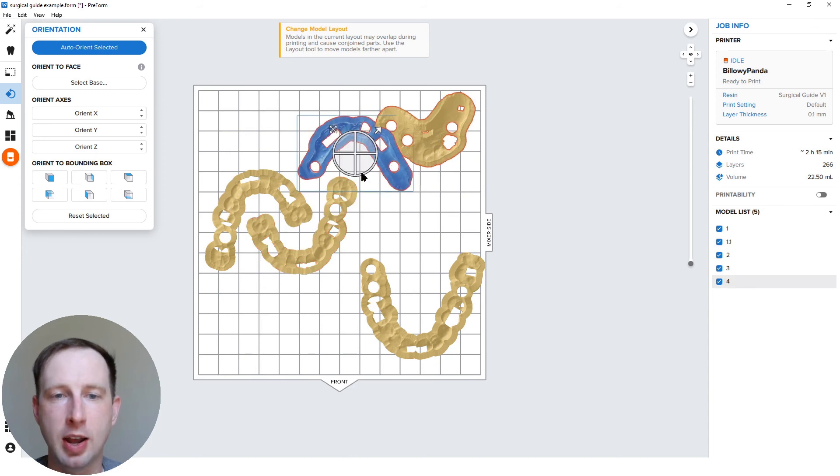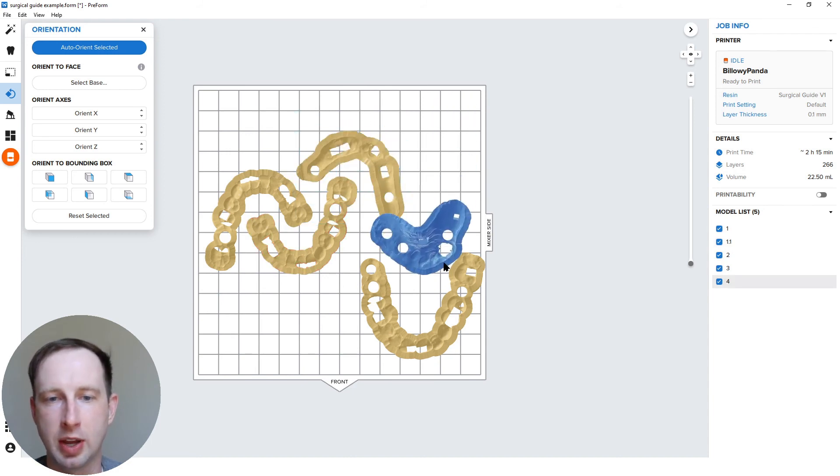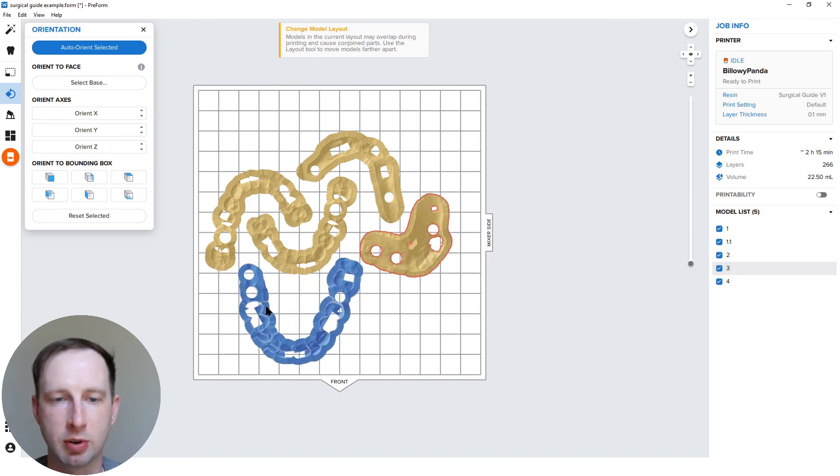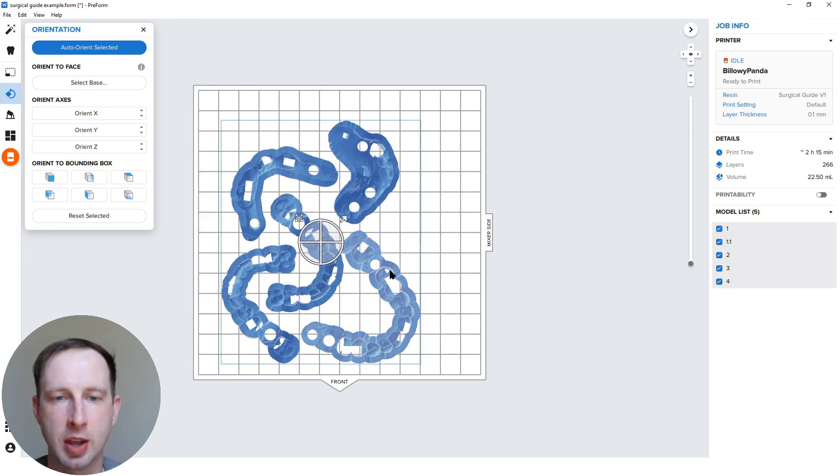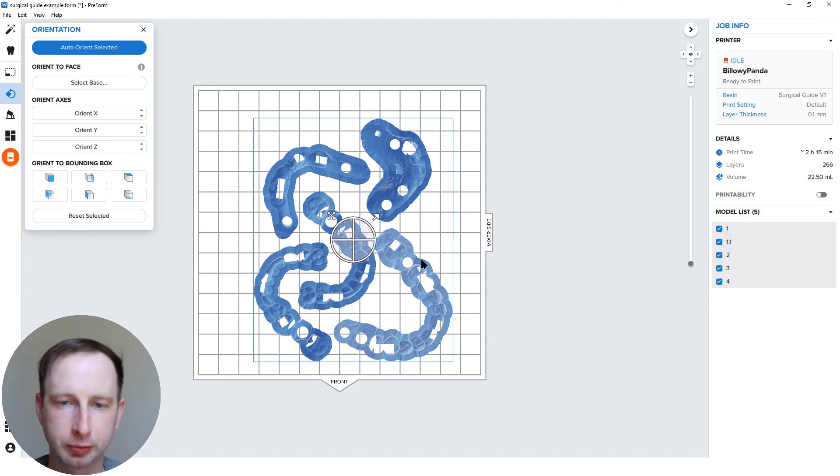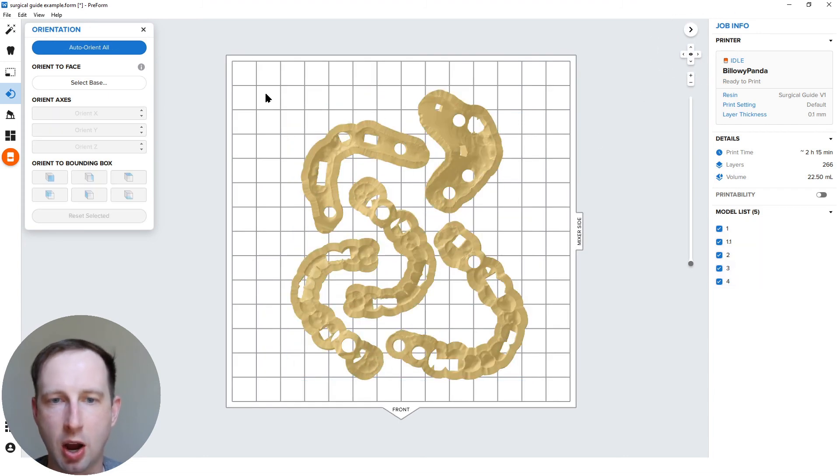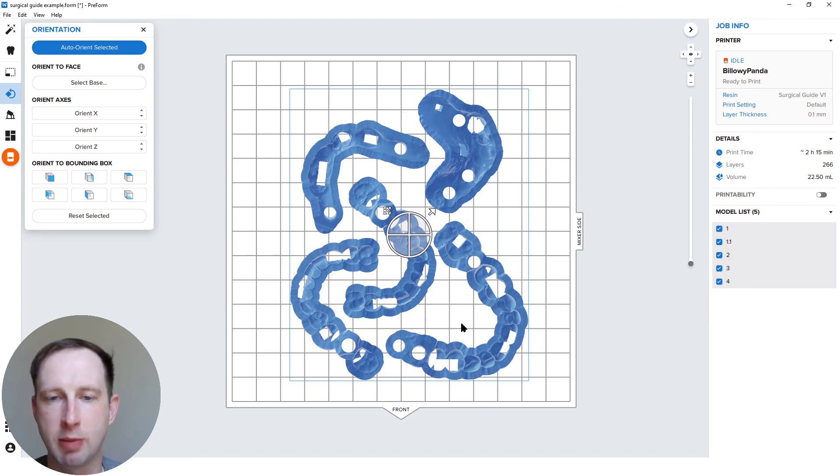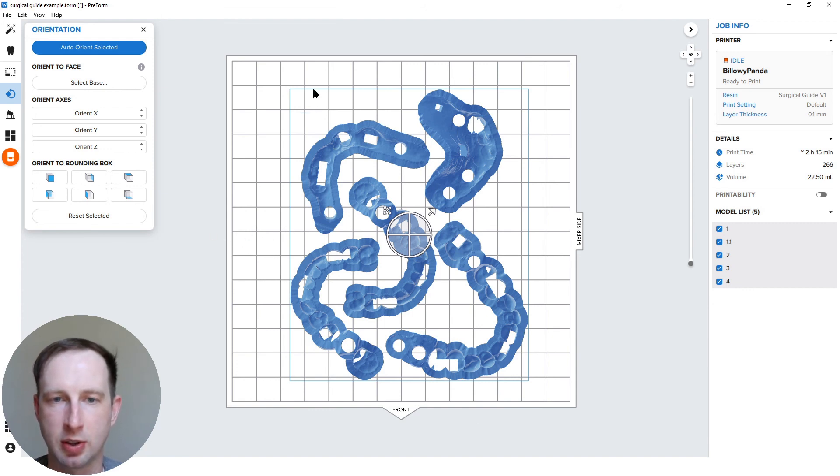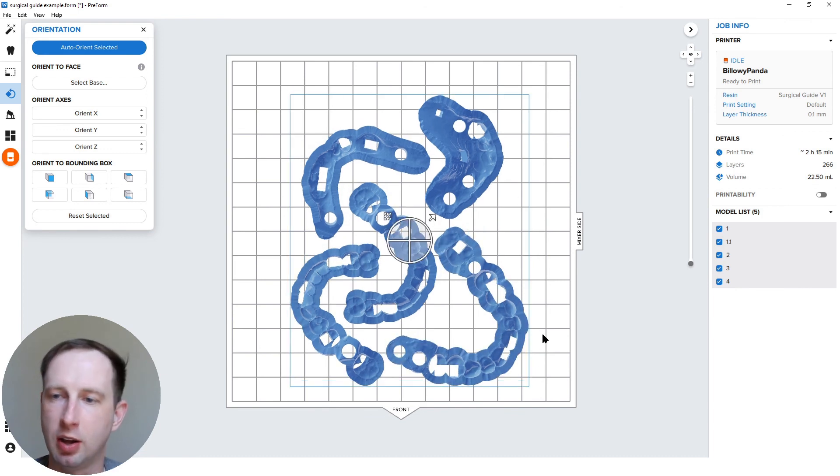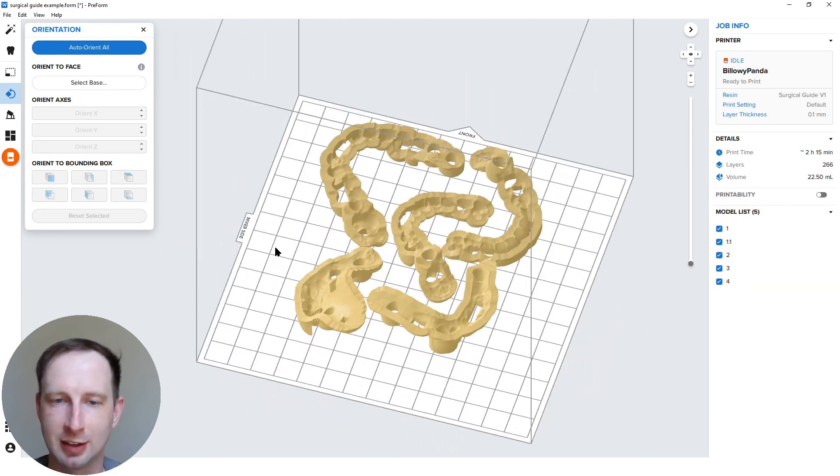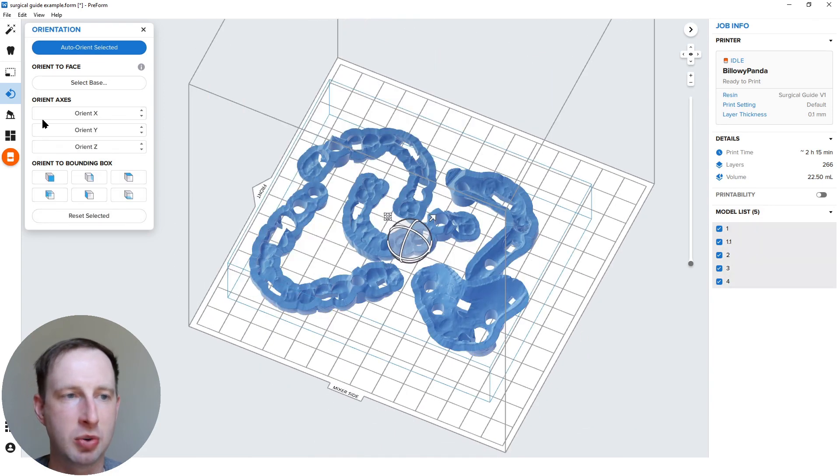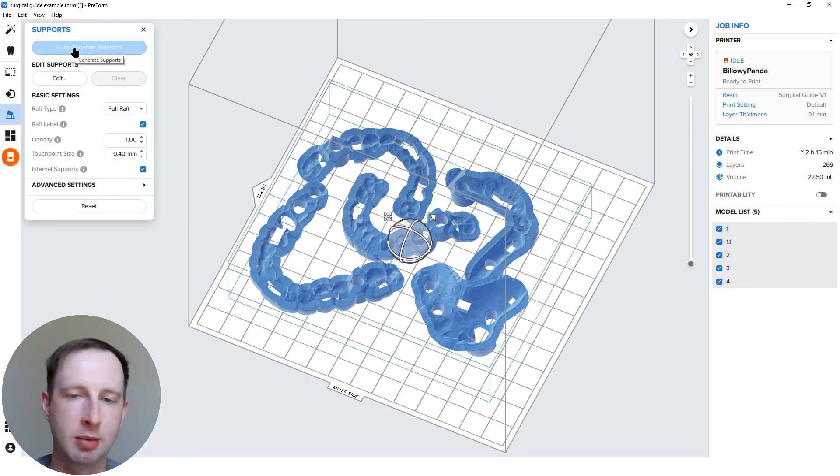So before I support, now that I've got these all into the correct orientation, I'll do a little Tetris. The last part I want to show is I usually like to do Tetris before I do supports, so get them all sort of set up in their general close together like this. And then when I'm looking at setting up a job, especially not filling the build platform, this is a top view. Again, I use my view tool to get here on the right-hand side, looking straight down. I try to, this is the front of the printer, the mixer side, take and position my parts in a group towards the front middle. Like if there are two lines here, these last two blocks here next to the mixer side and the last two blocks on the other side from the mixer, I like to position my parts something like this, even a little bit to the front. This is sort of my sweet spot. Take this all with a grain of salt. This is from my experiences and the testing and everything I've seen. But try it. This is the way I would set this up. I would just generate, go into my supports menu, auto generate from here. Boom, done print, moving on.